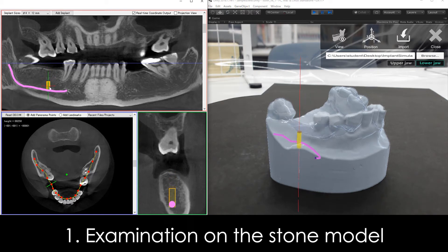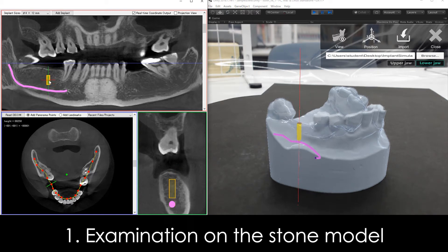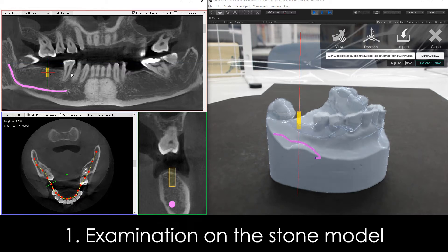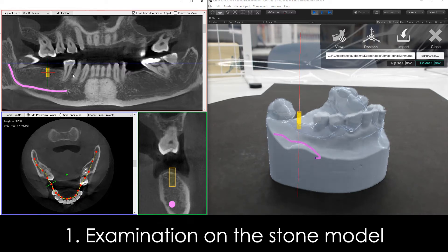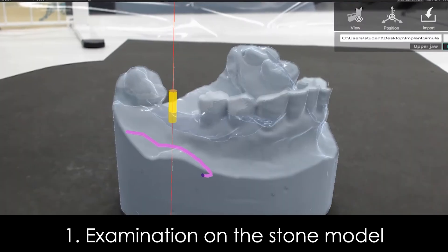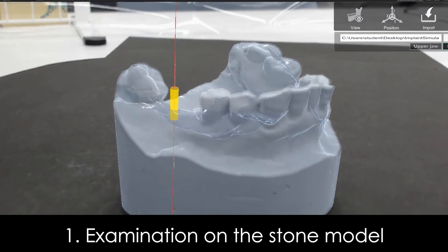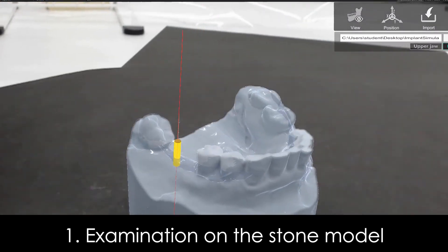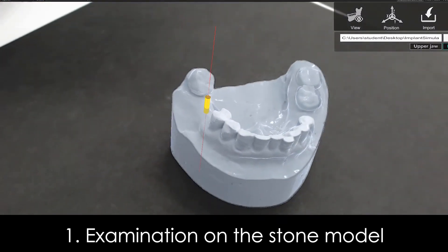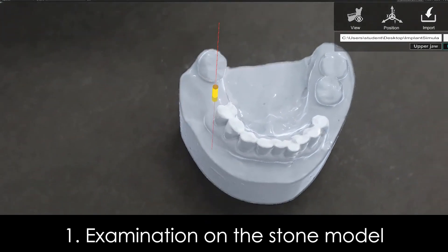The 3D objects indicating the 3D position of simulated implants were displayed on the stone model with good stability and accuracy. When there are bone or teeth together with the 3D objects, we can hide the overlapping areas.